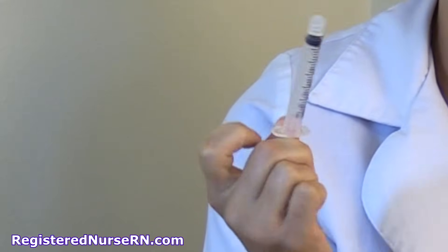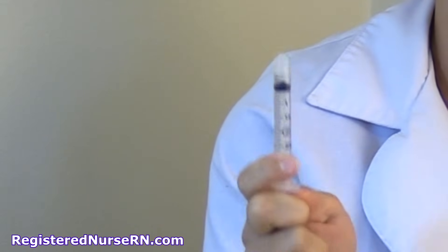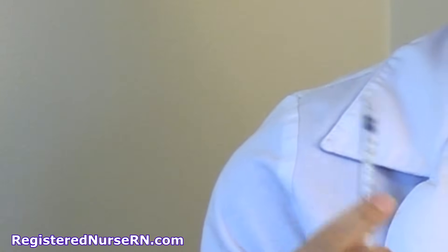As a nurse, you're going to have a lot of different types of syringes at your disposal, and you want to select the correct syringe for the amount of medication you want to give. For instance, if the physician has ordered 0.5 mL of morphine, the 3cc syringe is the best for drawing that medication up to get the most accurate dose. However, if you're going to give 0.25 mL of a medication, the 1 mL syringe is the best for that.